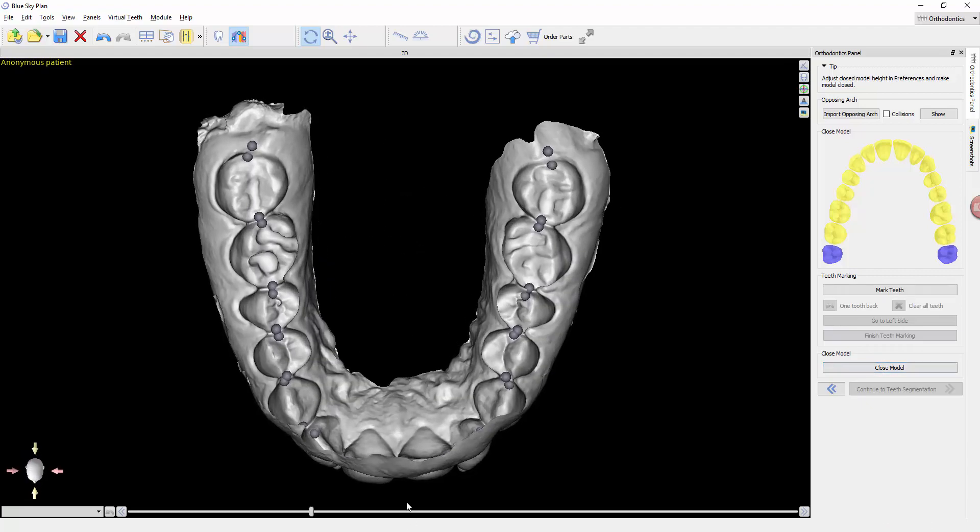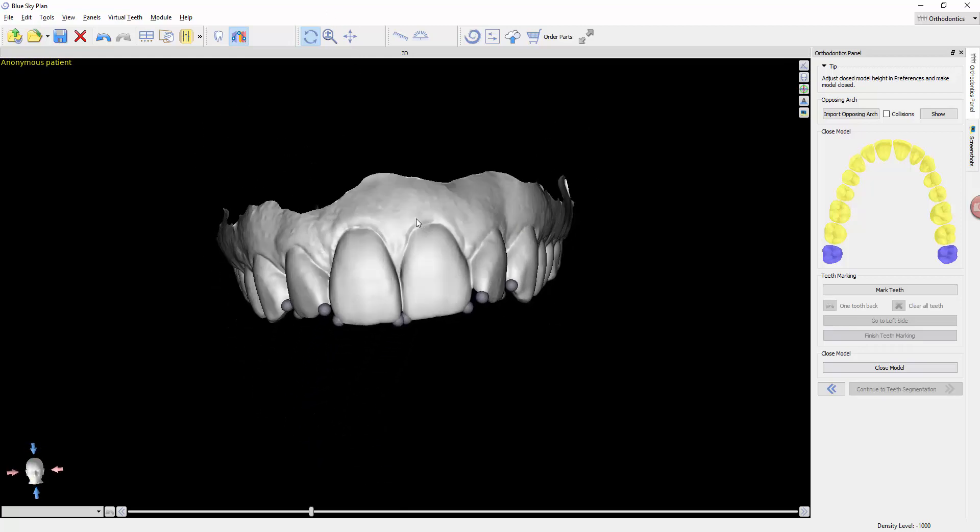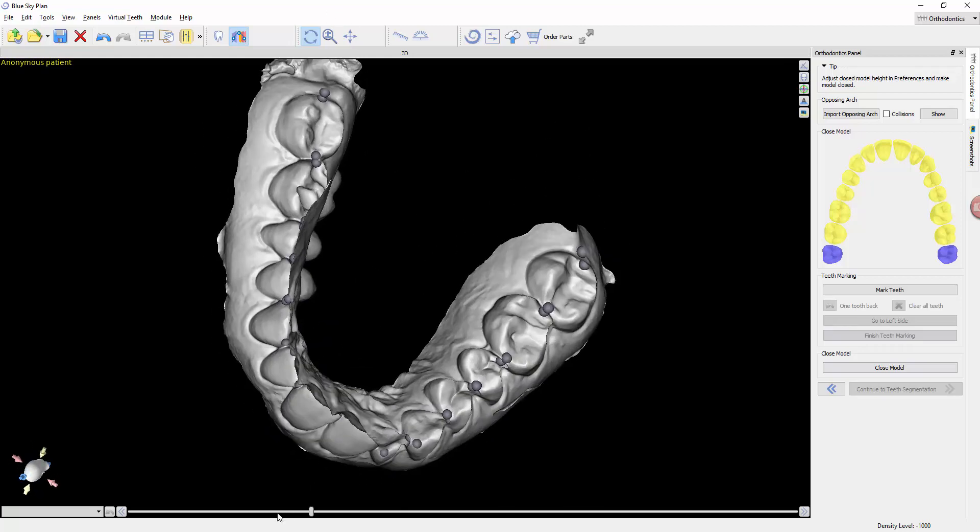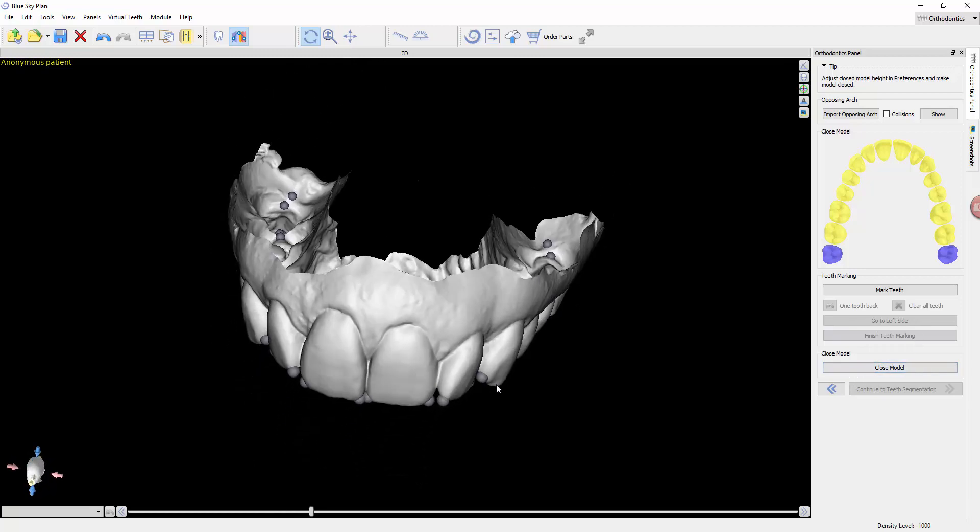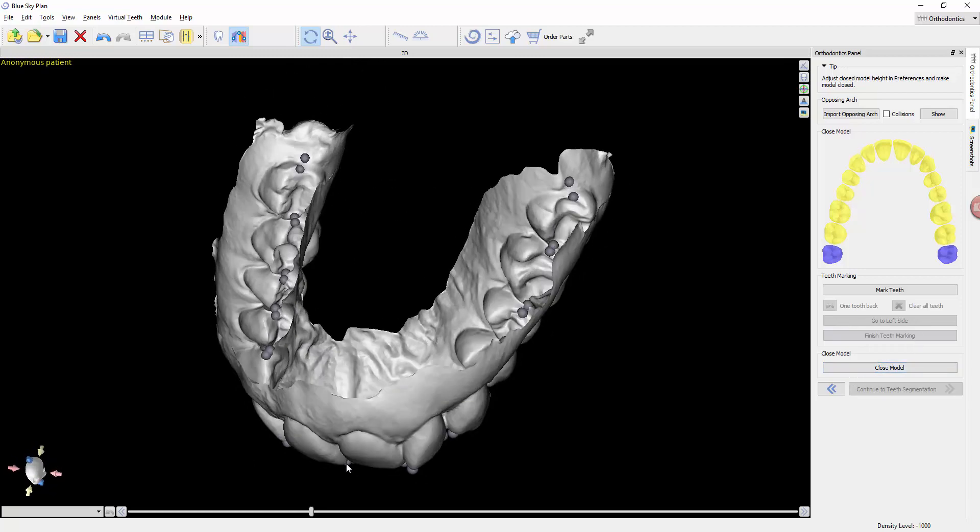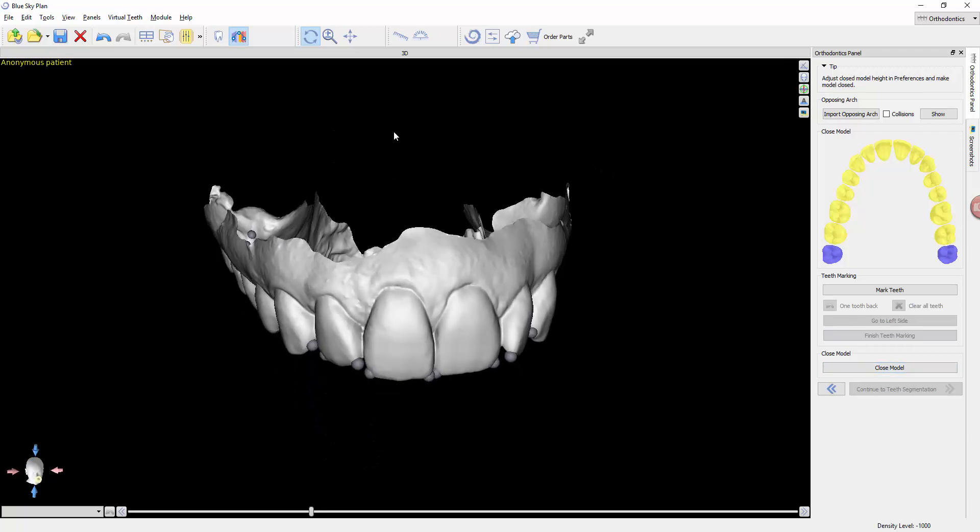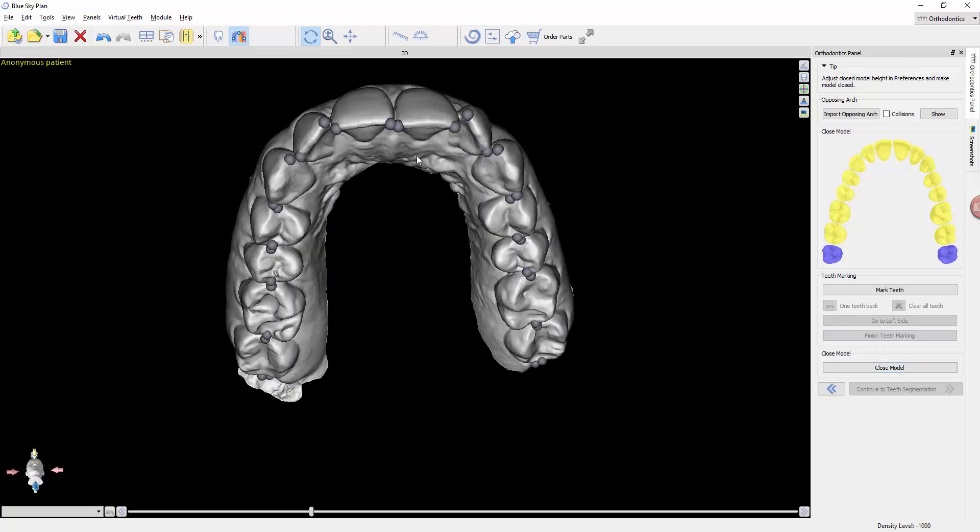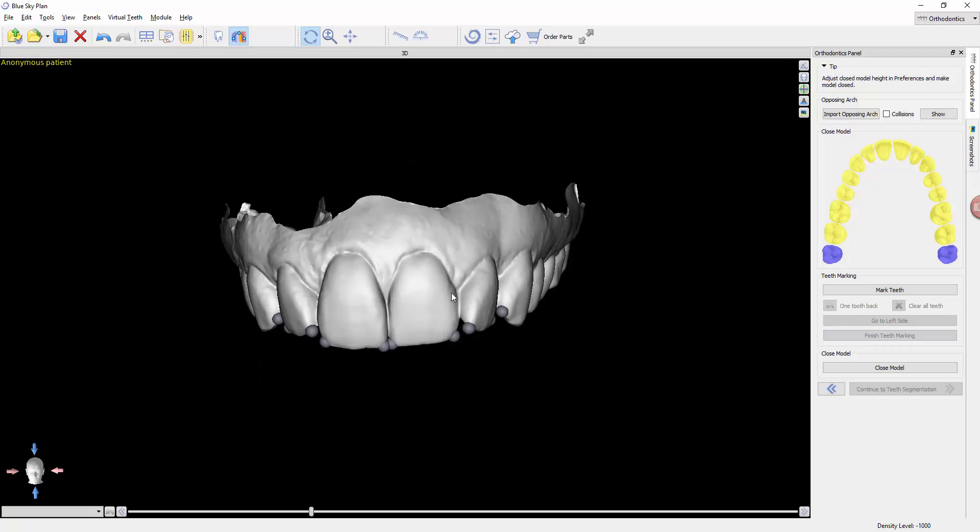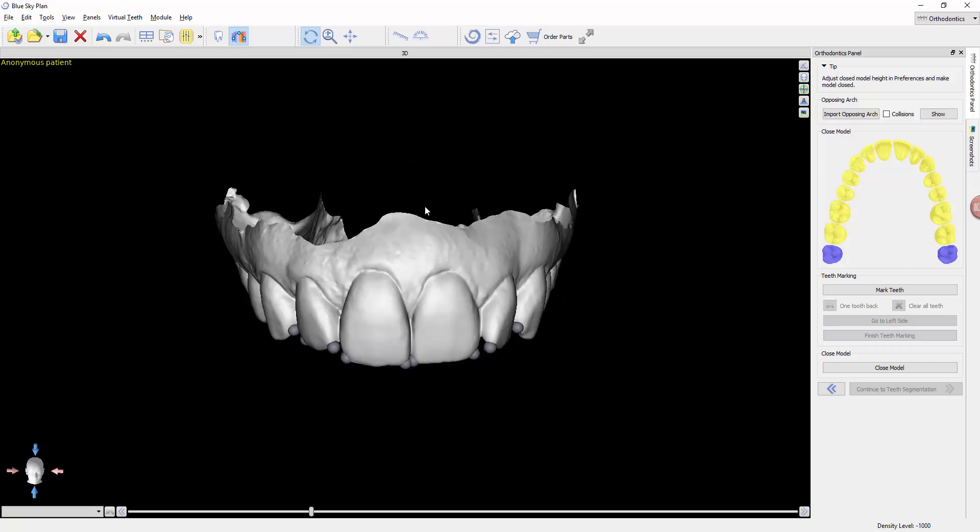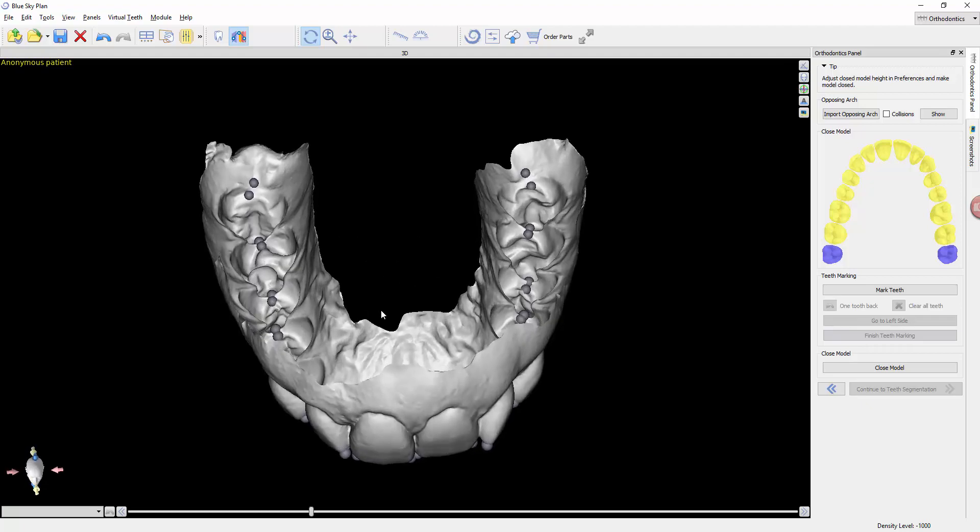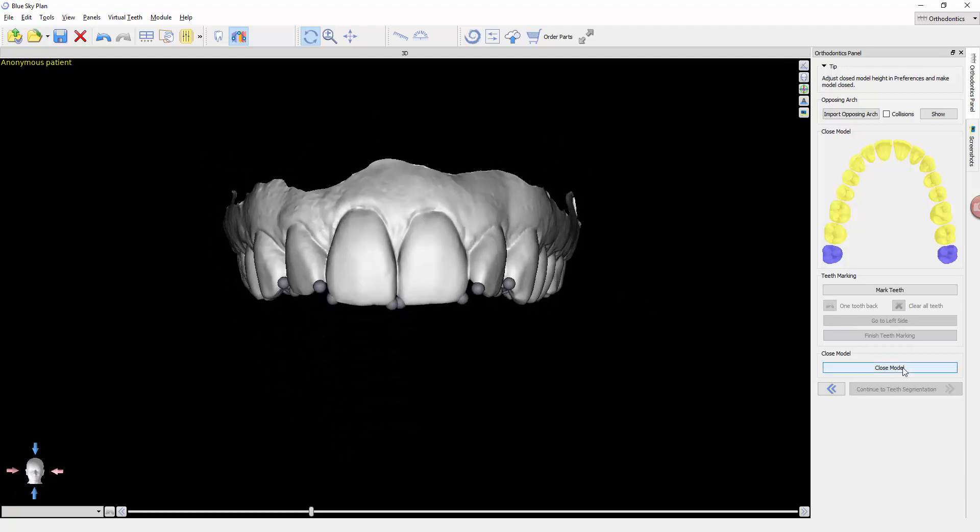Most optical scans are going to bring in hollowed out models like this. If you have brought in models that are closed, you can skip this step. But if there's any hole in the model, an error or anything else, it will require that you close it, because it cannot move forward with an open model. Be sure that if you're closing it using outside software, that you do analyze the model to make sure there are no holes.